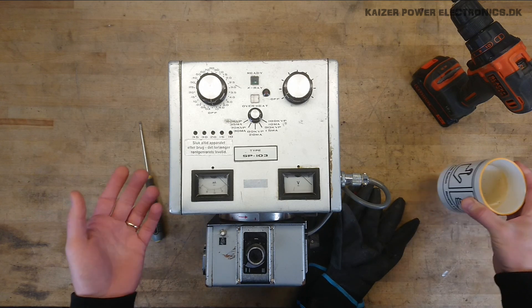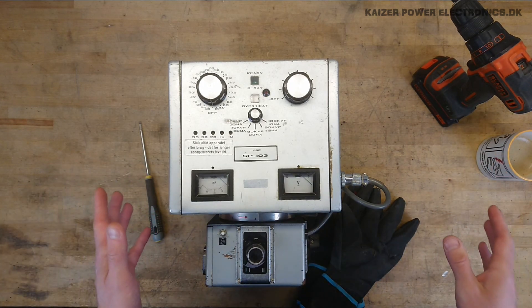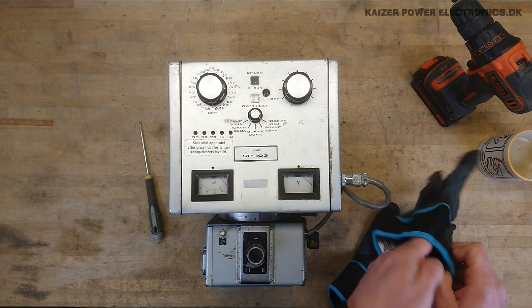Not that the coffee is any better. Of course this is good coffee, but it has nothing to do with the mug. Now, enough about the mug. What we have here is this X-Ray standalone system, portable system.